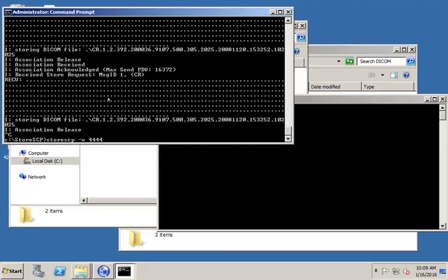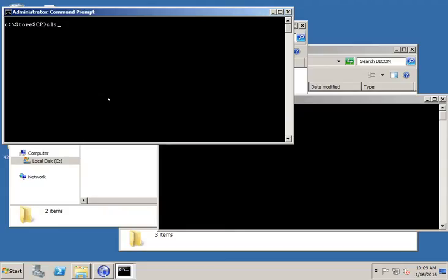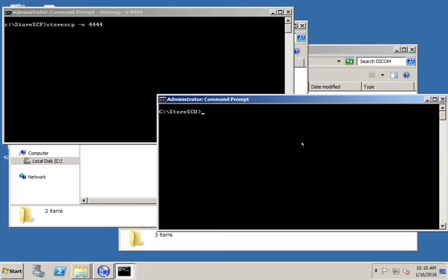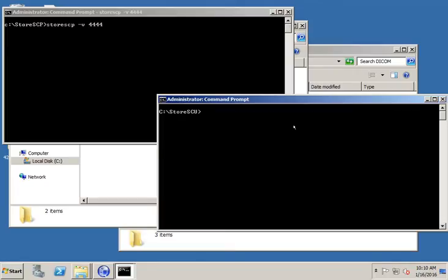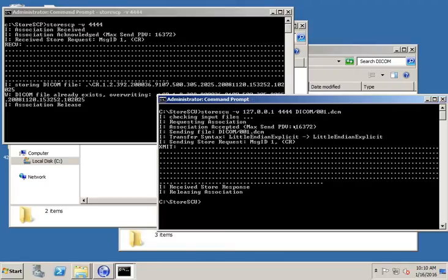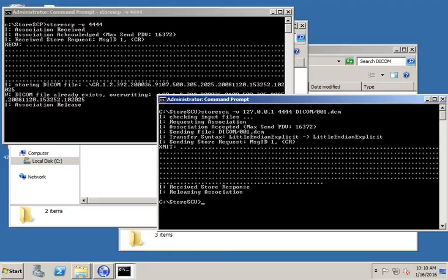And actually, I can clear the screen over here, too, just so we can keep things nice and clean. So I'm going to hit the up arrow key twice. That'll give me my command history so I can see storeSCP. Hit enter. And now we're listening on the left side. On the right side, I'm going to send a study. I'm going to hit the up arrow key to get to a command. So this is the command I ran previously, but I'm going to add a dash v in here, which is verbose mode. Notice I have dash v in my storeSCP up on the top. Now on the bottom right, I'm going to have dash v, which is going to add verbose mode. And when I hit enter, it sends the file. Now we can see some more information. We can see the request on the right-hand side and the receiving association on the left-hand side. So you can kind of see how the two are working together.